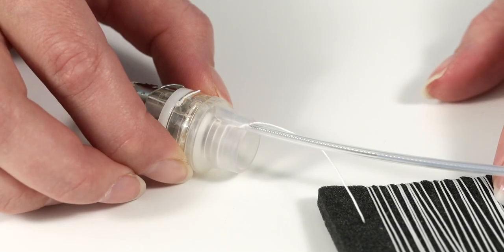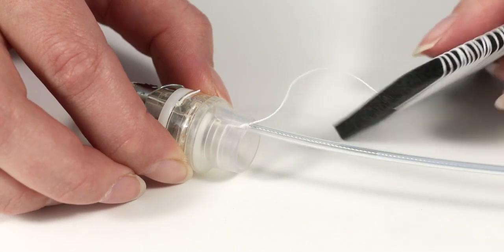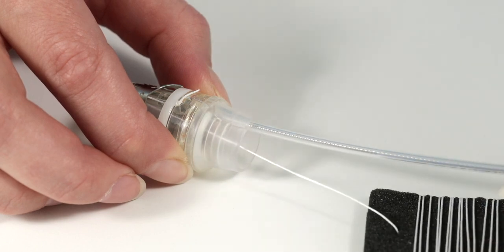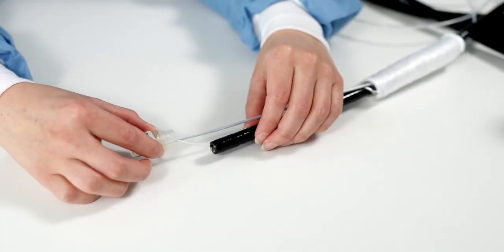Ensure that the release thread is not wound around the snare shaft throughout assembly. This can otherwise make clip application difficult or even impossible.